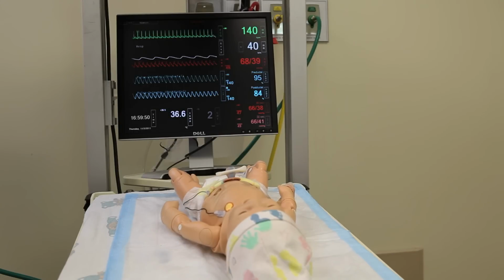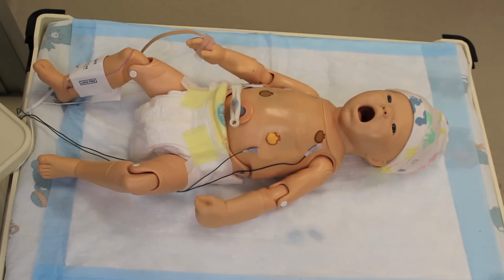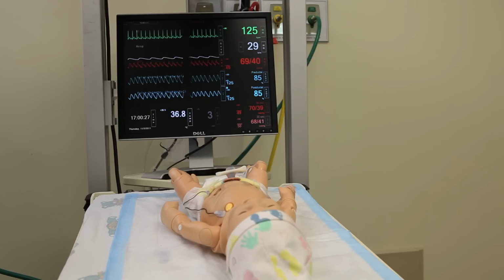Next, we're going to hear his cry. And he's going to move into his reduced movement. If the baby was more depressed, for example, he would move less often. In the S.T.A.B.L.E program scenarios, we try to correlate movement with vital signs. So if a baby was deteriorating, for example, as we can see he's now completely stopped moving, you'll notice on his vital signs that his heart rate has come down, he's desaturated a little bit.